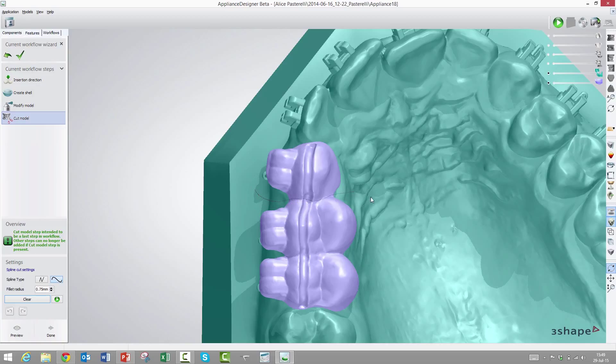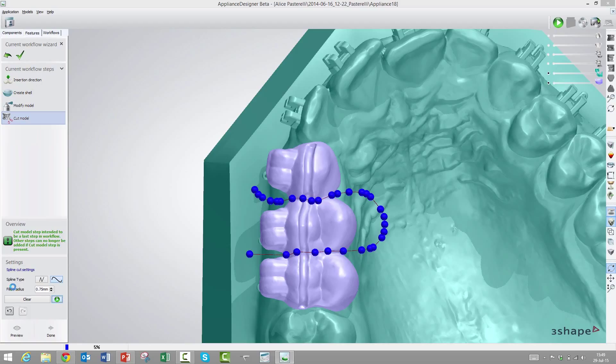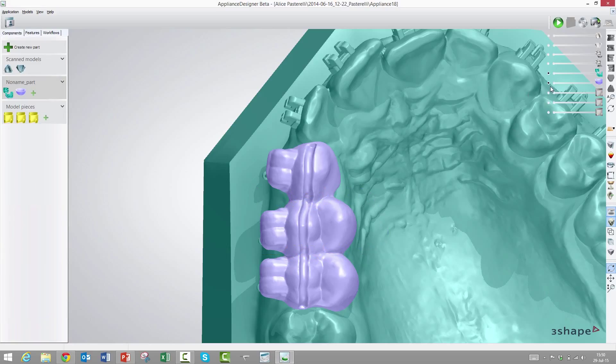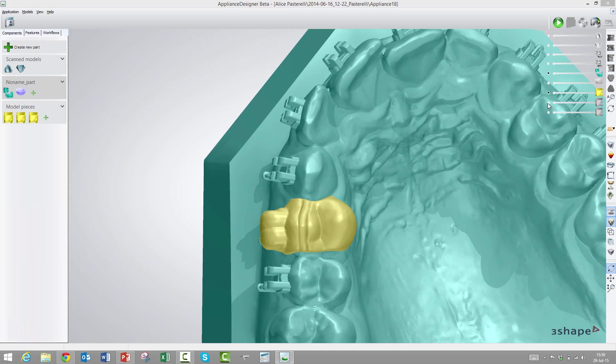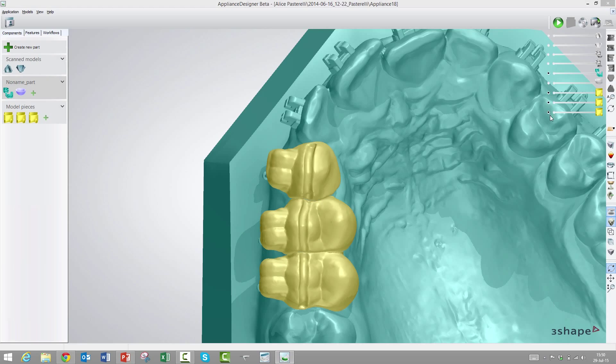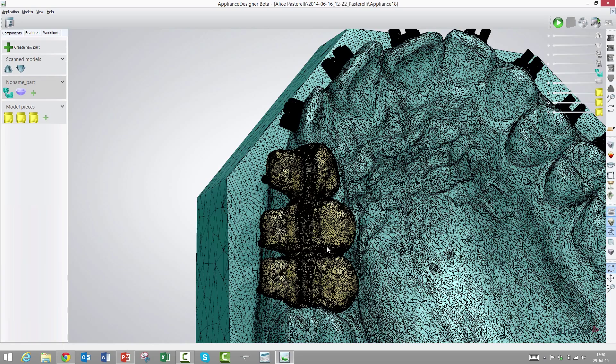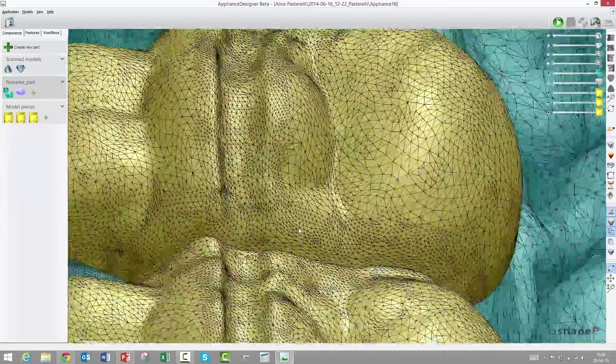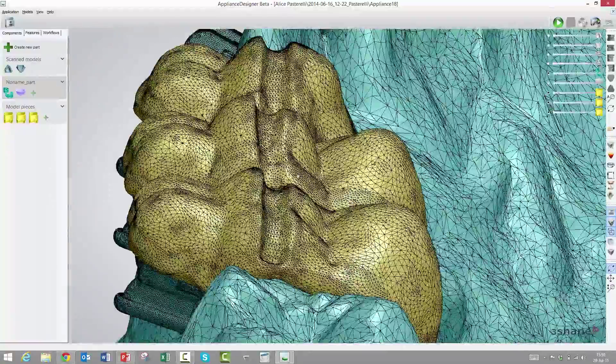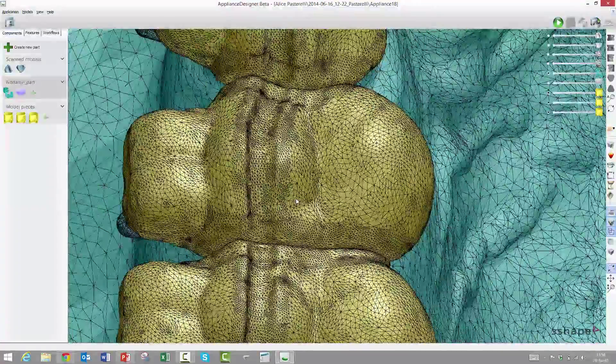If we had made this transfer tray along the entire arch, we would probably want to seat it in sections. We could cut it up, and I'll demonstrate this function. We have this cut model function. You can simply draw where you want to cut it. You don't even have to let go; you can drag it around like this. Now we could cut it up in the relevant places. Press play and it will start cutting it up in the sections we have chosen. It's also possible to choose straight lines and define how thick the knife should be.